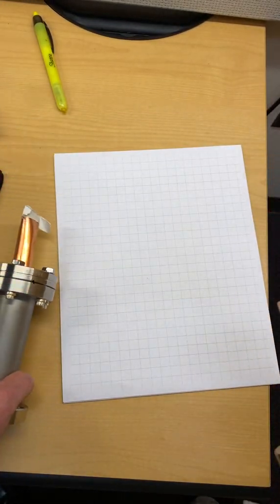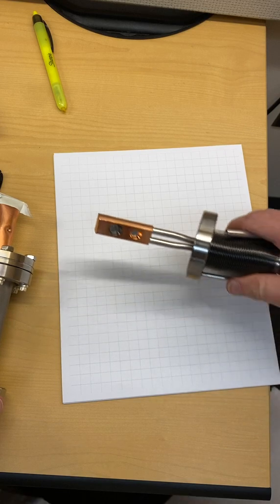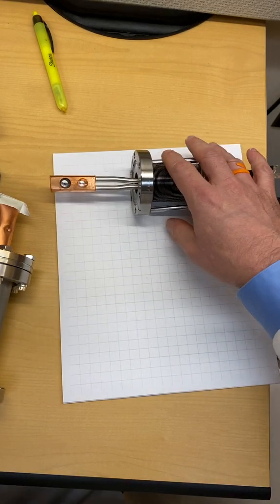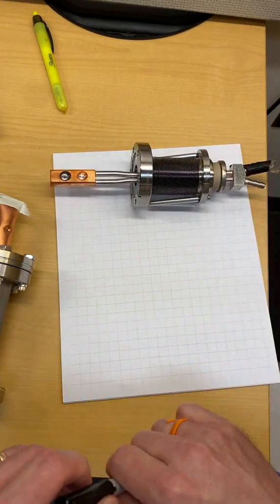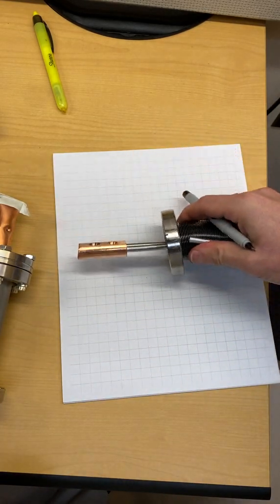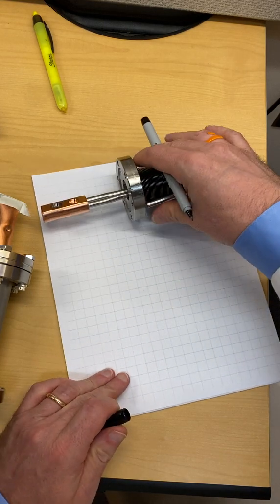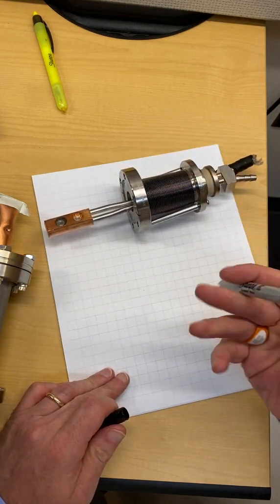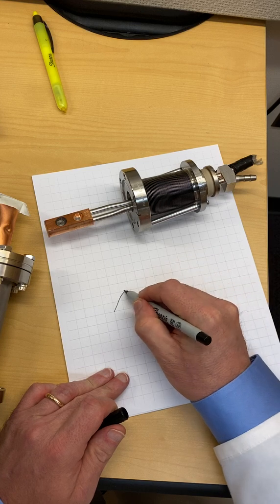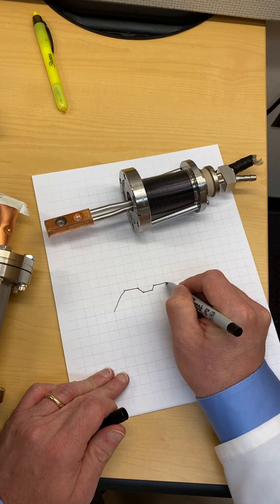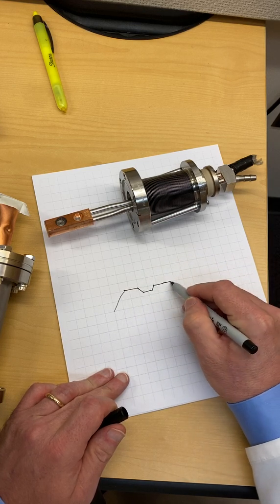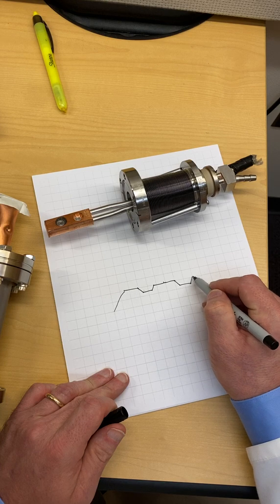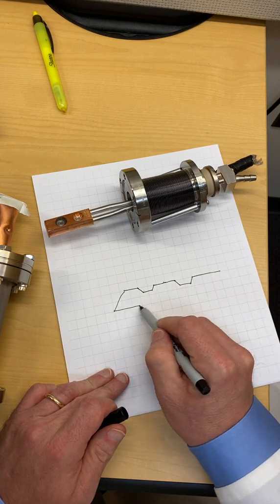So that's the basics of the high energy x-ray target. Just to emphasize a point about the target thickness, I think you can tell if I were to draw a cross-section of this thing. The target would look something like this: have the 6 MV divot, the 15 or as we call it 16 MV divot, and then on the other side you'd have a much deeper hole for one versus the other.